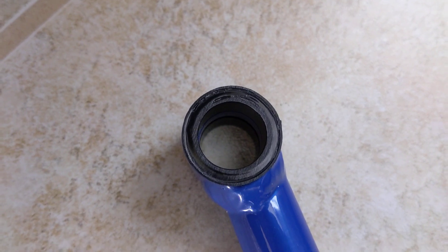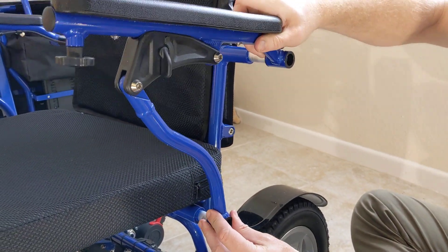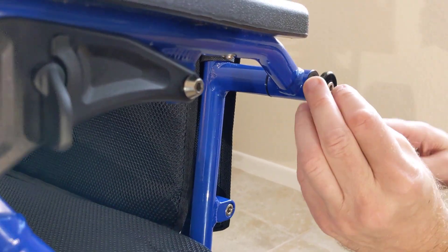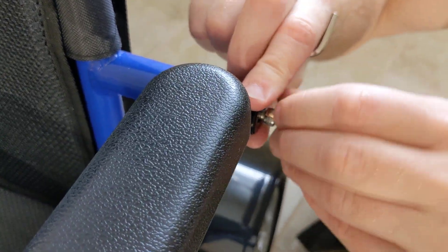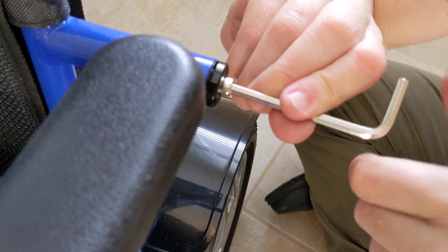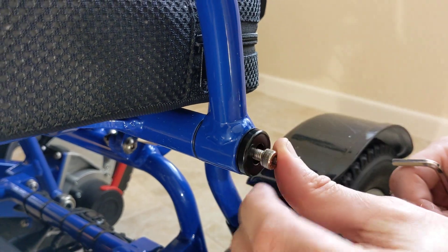The whole apparatus just slides right off and I can set it down. I want to make certain that those washers stay inside there. I get two of the four anchor screws. We take a look at the side here and all we have to do is fix that where it needs to go, slide it back, and thread these guys through. It's pretty simple to do here. You don't need to make it so tight that the chair is not functional, but they do go a pretty fair way in. I don't force them — I kind of get those in there and nudge them.